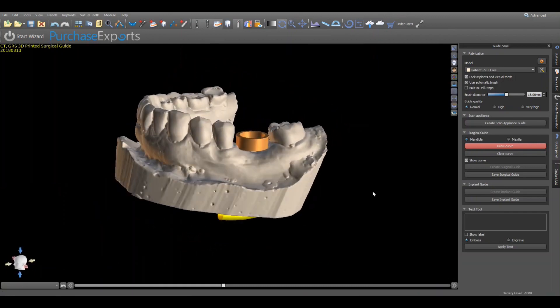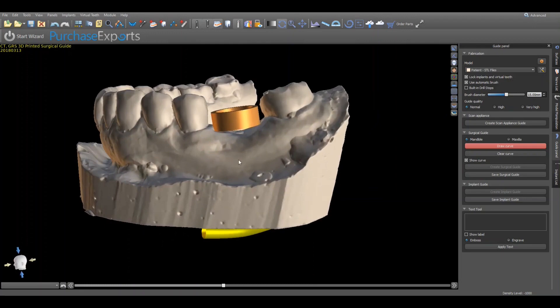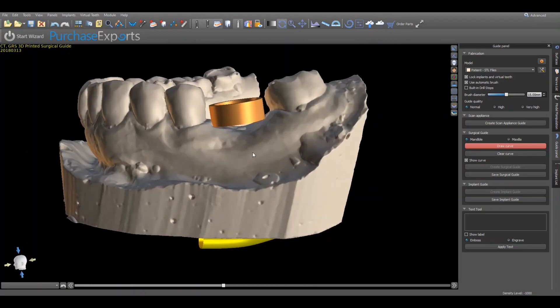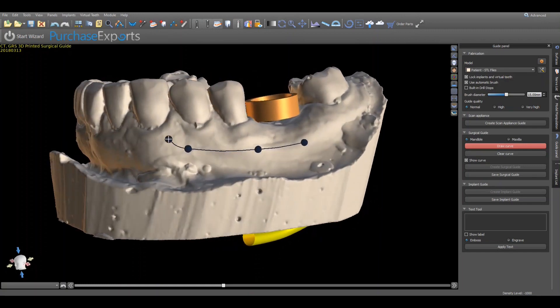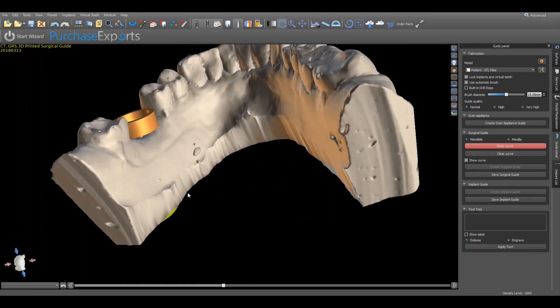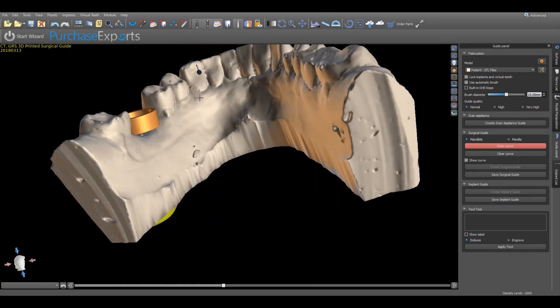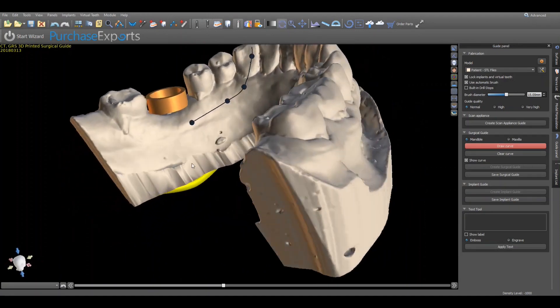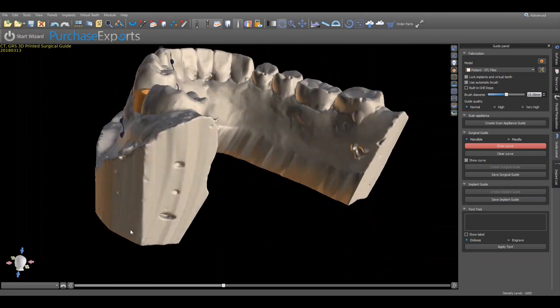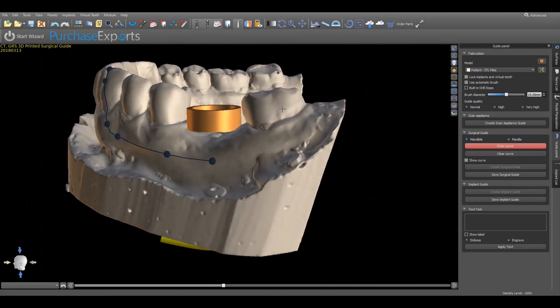To begin designing the surgical guide, simply place the cursor in the desired location for the surgical guide flange extension, hold down the shift key, and left click the mouse button to apply a virtual node on the 3D model. Each subsequent node will be connected to the preceding node with a thin line indicating the final position of the surgical guide flange extension. Once all nodes have been placed and connected, verify the overall design taking into consideration all undercuts, interproximal spaces, and anatomic landmarks in order to yield a comfortable and accurately fitting 3D printed surgical guide.